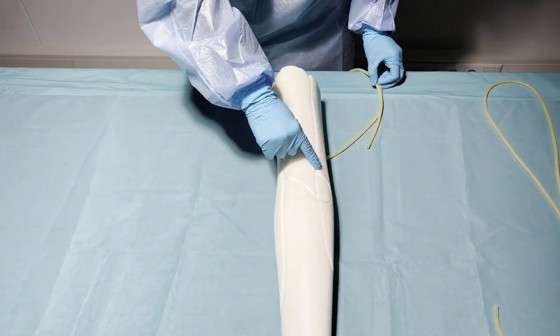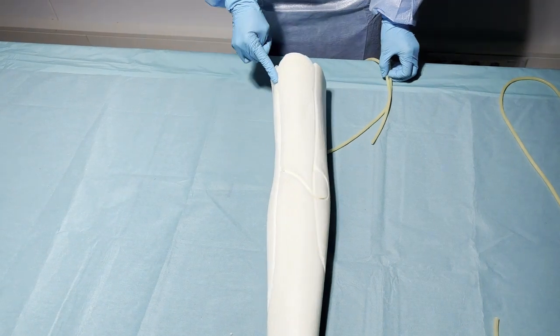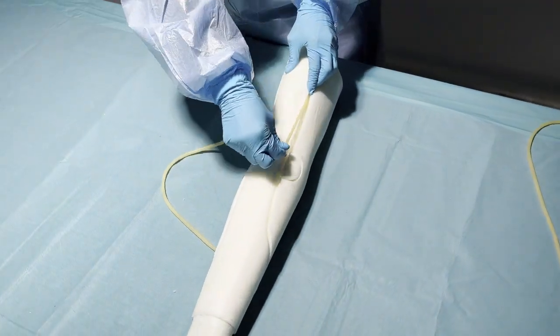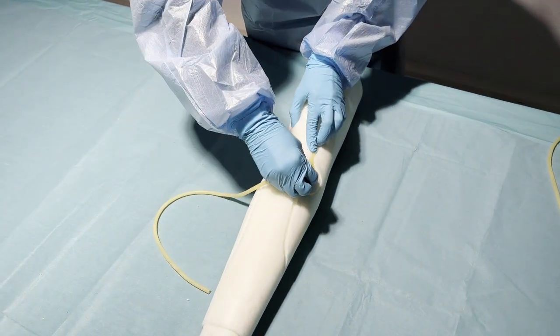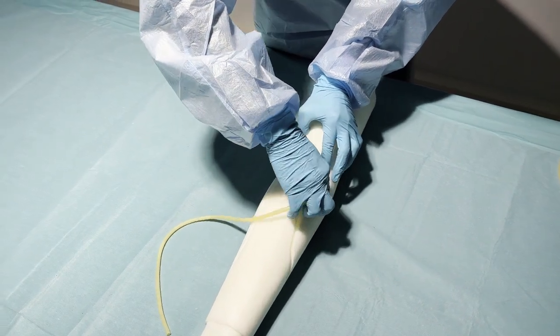To do that we have to make sure that the veins go into the groove and around the first loop and then go back. Make sure that you secure the vein well by pressing it deep into the groove.